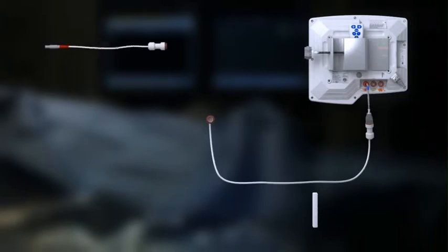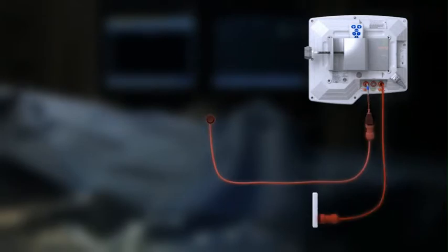To complete the monitor pass-through circuit, route a cable from the AO out back to a free pressure channel, typically P1.